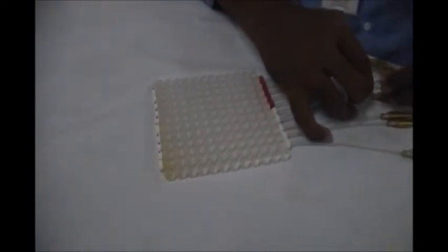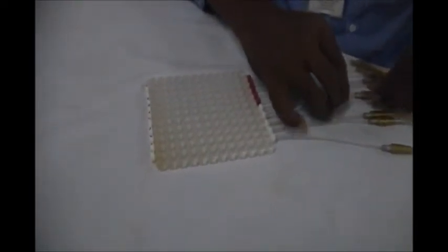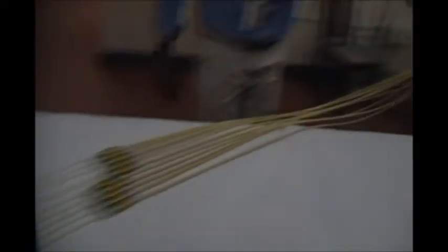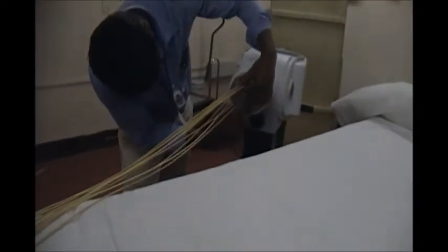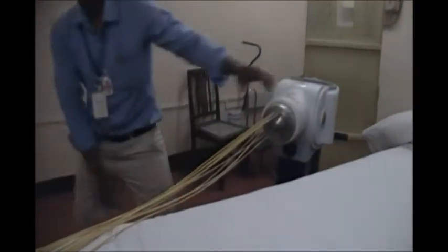I used to jokingly call this the bubble mold. It is actually the surface mold provided by Nucleotron. Each bubble is where the source can go and stay at the middle of it, and this is where you need to check whether it's properly locked.